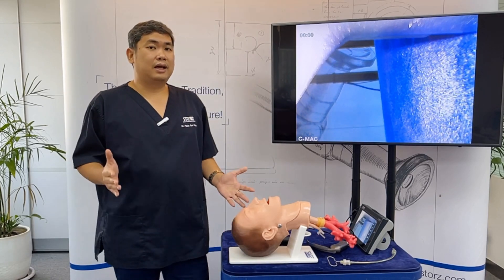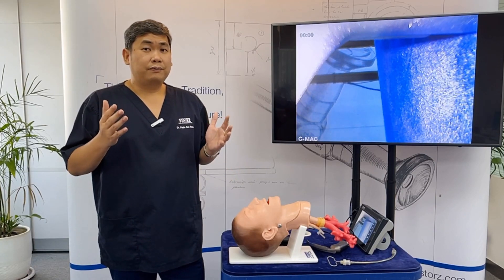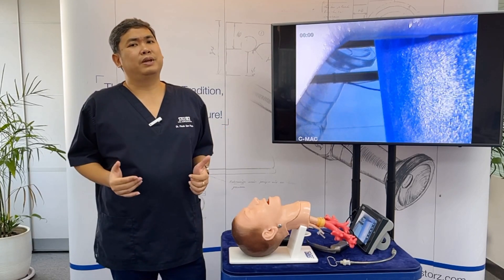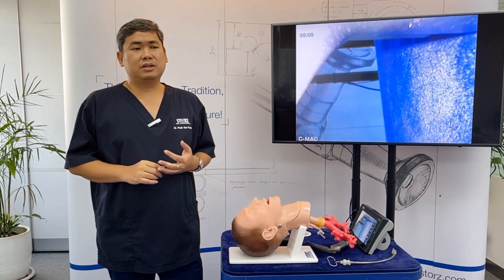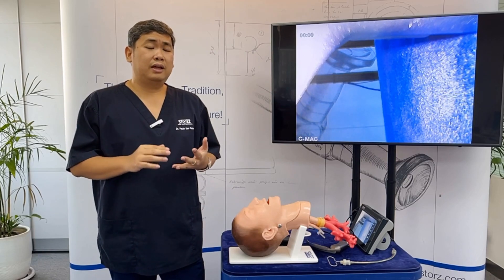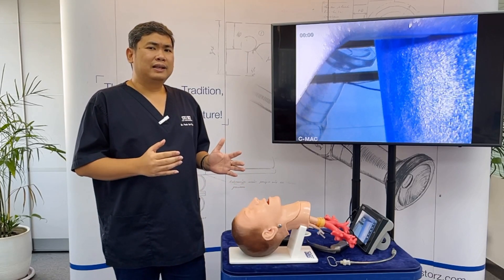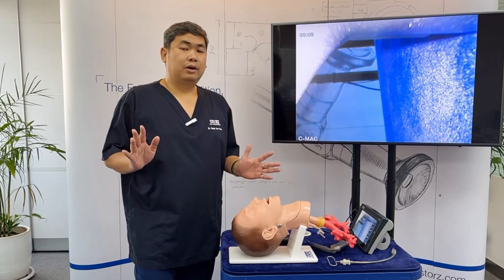Discuss the advantages of decreased force during video laryngoscopy. This equates to a more stable patient — you have less stimulation, which is important because you don't want an increase or decrease in heart rate and blood pressure. Also, since you're applying less force, the chances of injuring the patient are also reduced.